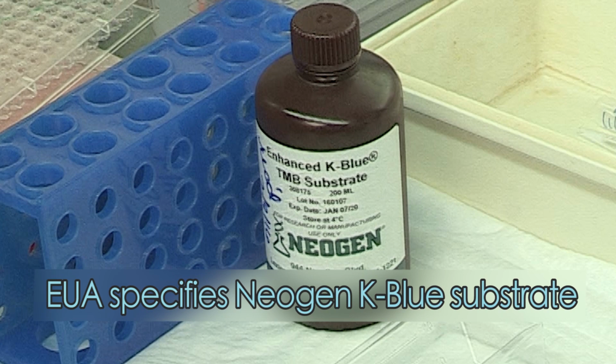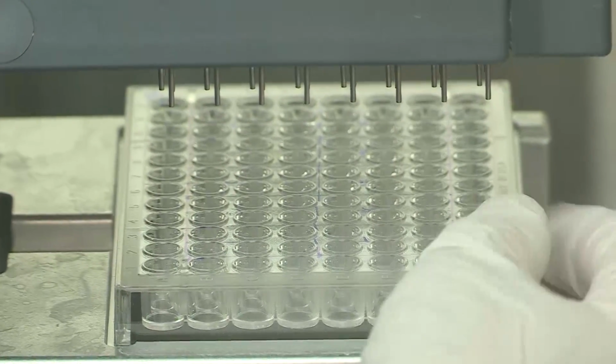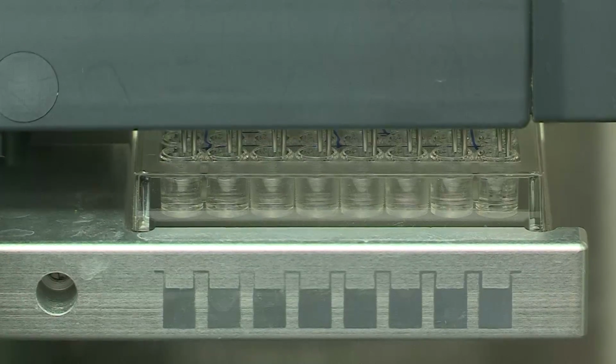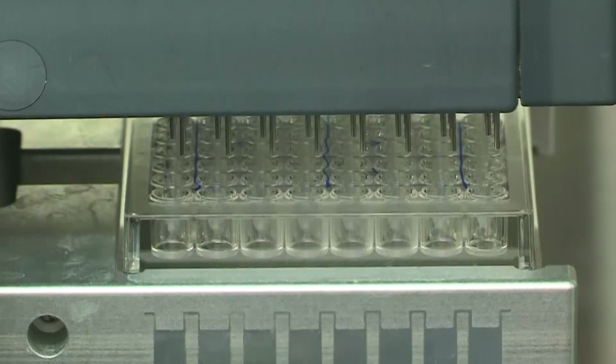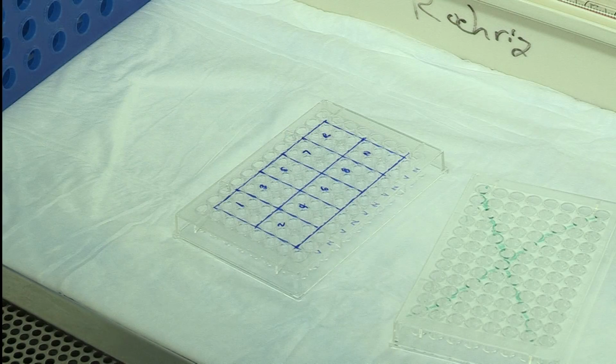Here we are using Neogen K Blue. Wash the plate and then turn it 180 degrees and wash again for a total of 10 washes. This is to ensure even washing of the wells. Blot the plate on paper towel to remove any excess wash buffer.